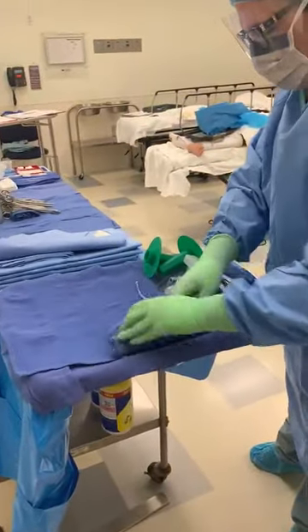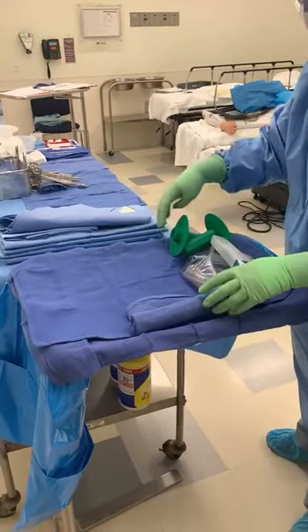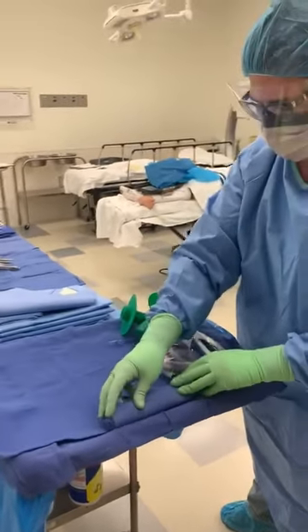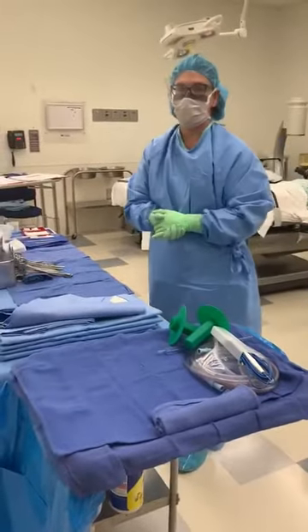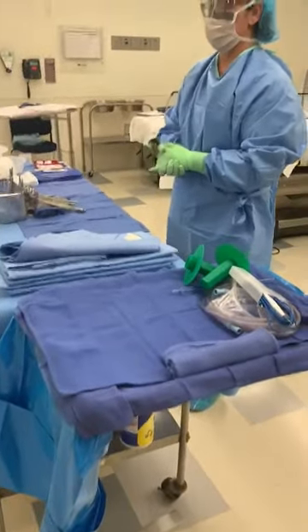For this competency and for classroom purposes, if you want to keep that towel roll on the center left, that's a great idea. But please note this will change positions depending on the case and your preceptor that you're working with. You'll eventually just find what works best for you.